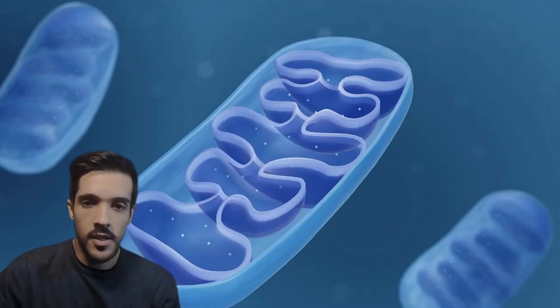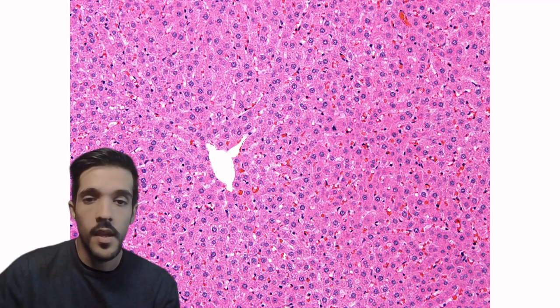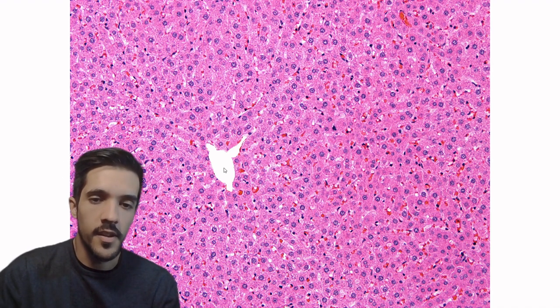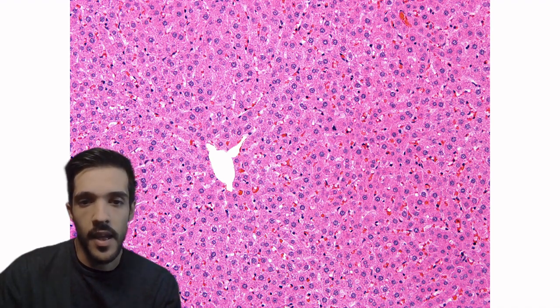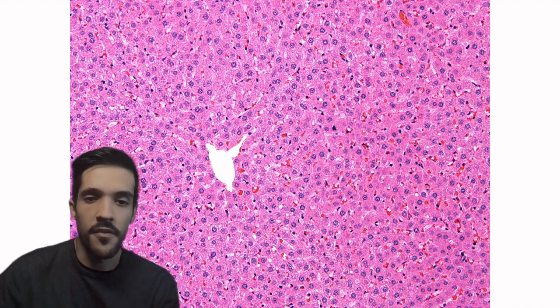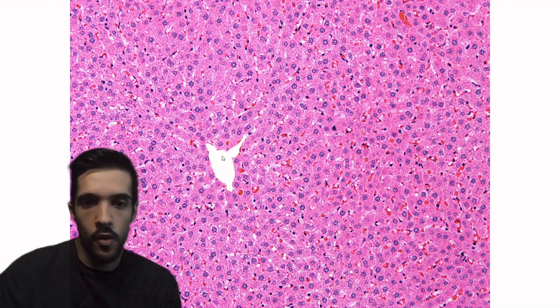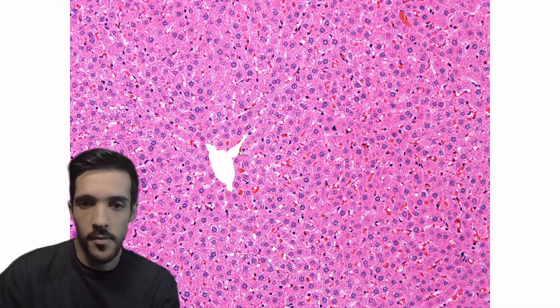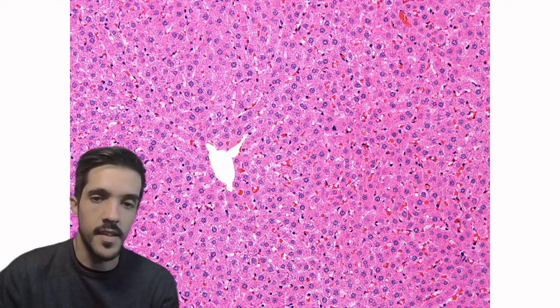Let's see now the logic behind the SCHELI segmentation plugin. We start with a normal hematoxylin eosin image. In this case, since there were a lot of erythrocytes in this particular vessel, we decided to enhance the process of segmentation by filling in all of the vessel with white pixels. This is an optional step, but it increases the accuracy of the segmentation.